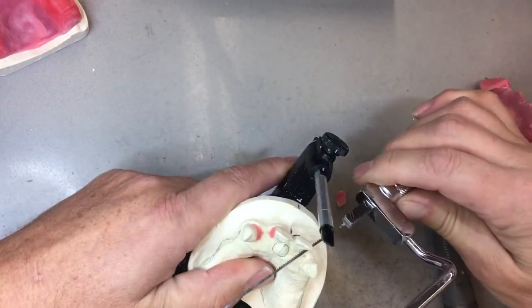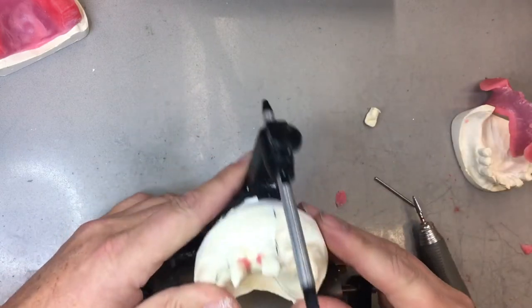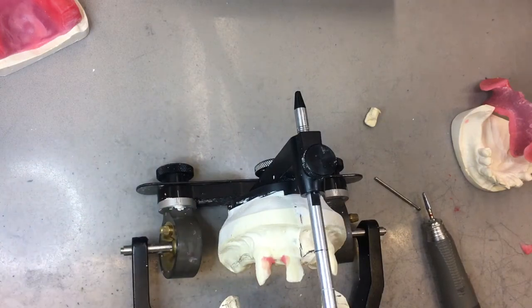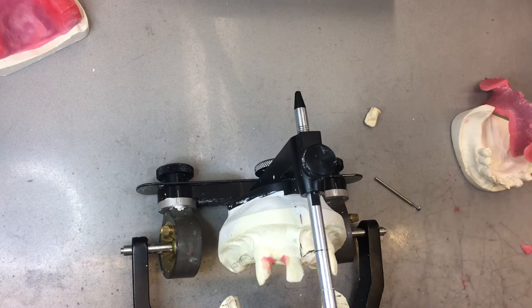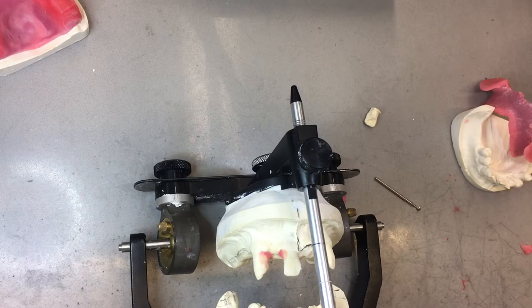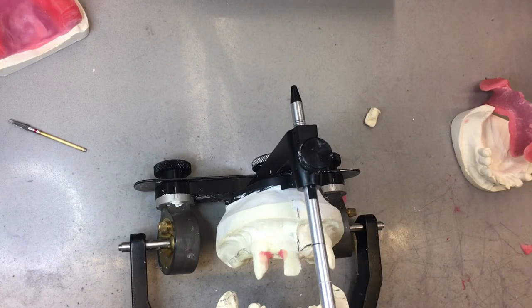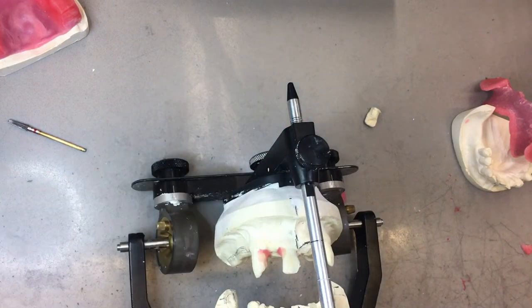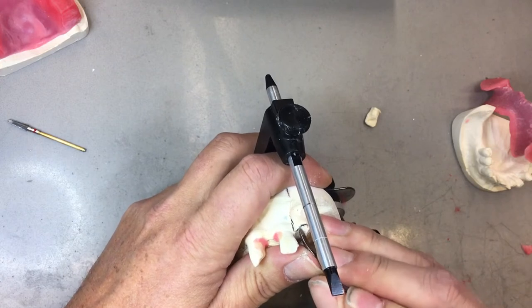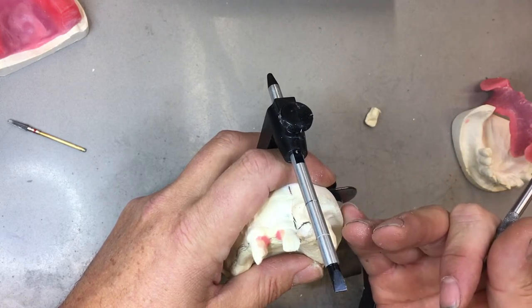I'm going to take my coping saw and extract tooth number 2-1. Tooth number 2-1 is now extracted. I have to guesstimate what the ridge is going to look like post-surgery. If I reduce too much stone structure here, the denture is not going to go into the client's mouth. If I reduce too little, the denture will be slightly slack. We have no idea how they're going to respond to the surgery — it might be more edematous for some people. The dentist might put sutures in, there's going to be blood clotting. So we better err on the light side — don't be too aggressive reducing the model structure.